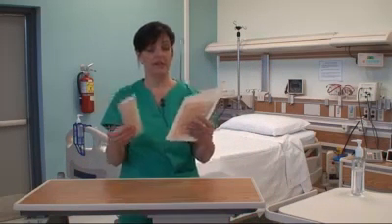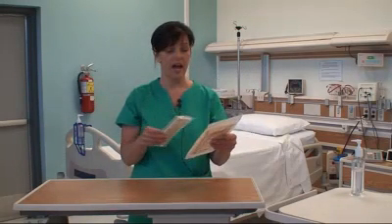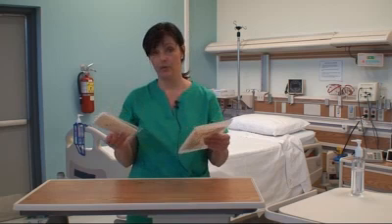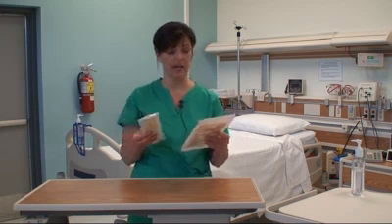In terms of sterile gloves, sterile gloves come in various packages, and I have two samples here. Sterile gloves can be latex or latex-free, and powdered or powder-free. Different agencies have different packaging for sterile gloves.